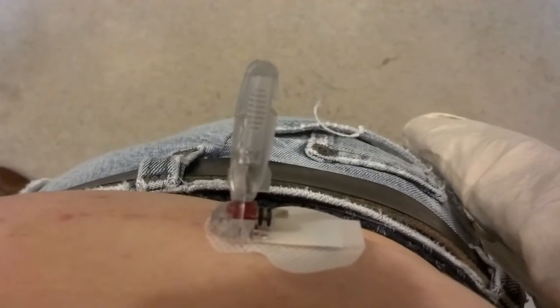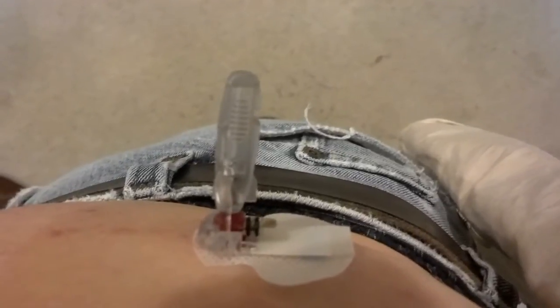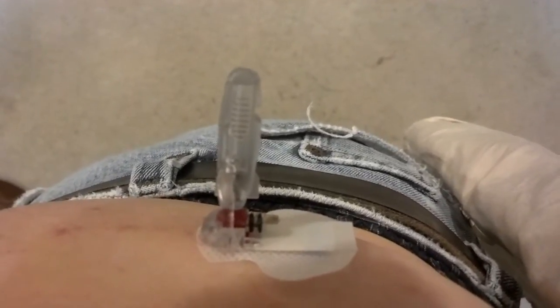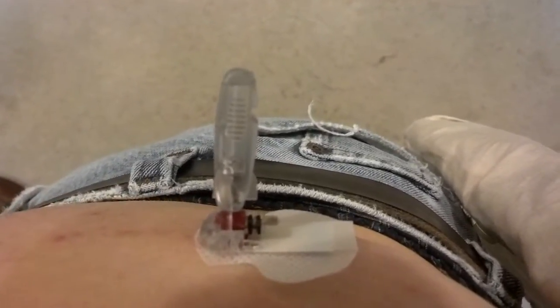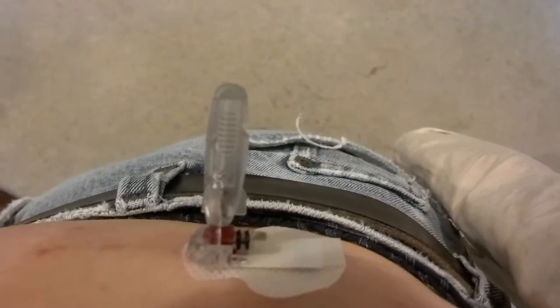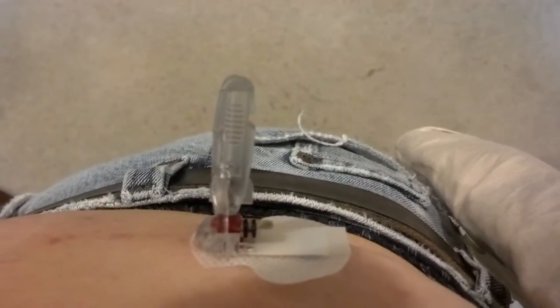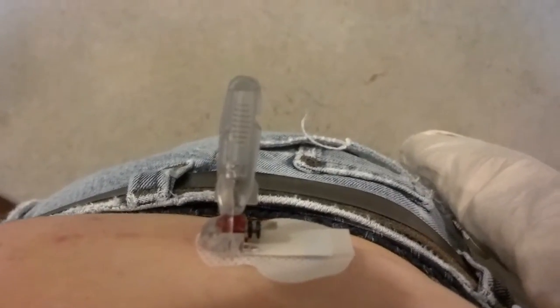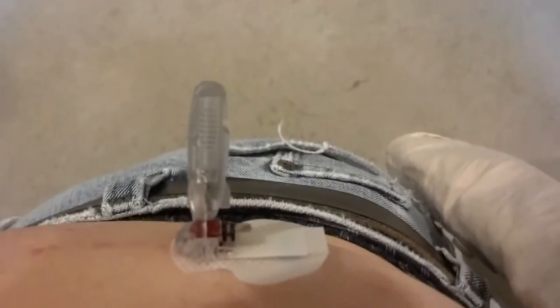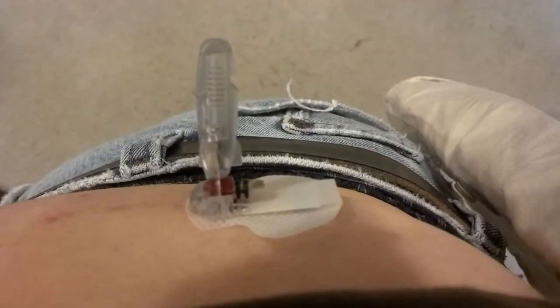Other than this though, I do want to say that this is a fantastic device. I'm not very happy with it right now but by and large I'm extremely happy with my continuous glucose meter and the way it works with my insulin pump. So hopefully Minimed will get this problem fixed so I won't have to go through this. I'm going to set the camera up again now so that I can remove this from my skin.